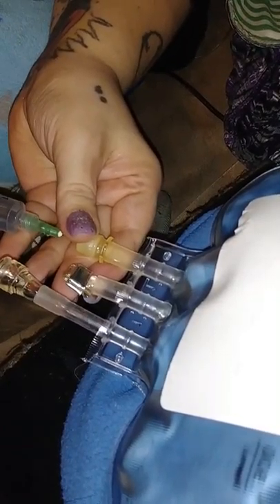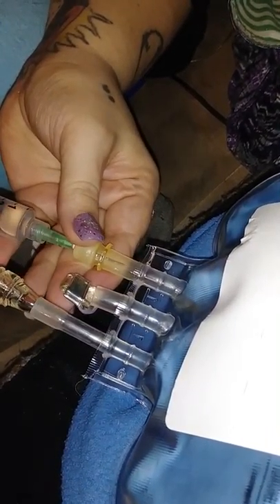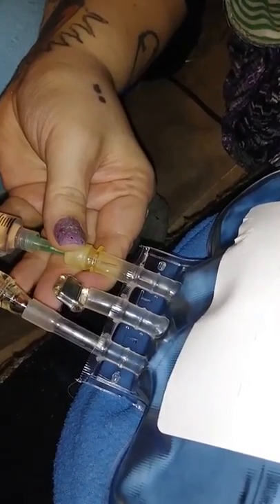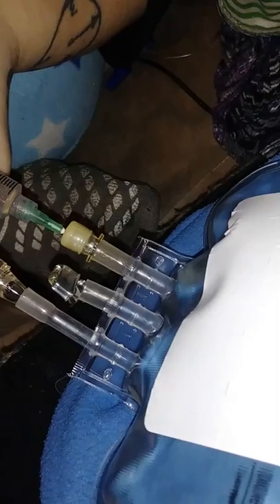Three times is generally what I do, and that's just because even though it's in a sterile refrigerator, these ends are exposed. So now I have to thread the needle in so I don't hit any of the sides, push the stuff in, pull some fluid back out, push it back in — so I rinse the syringe out that way.